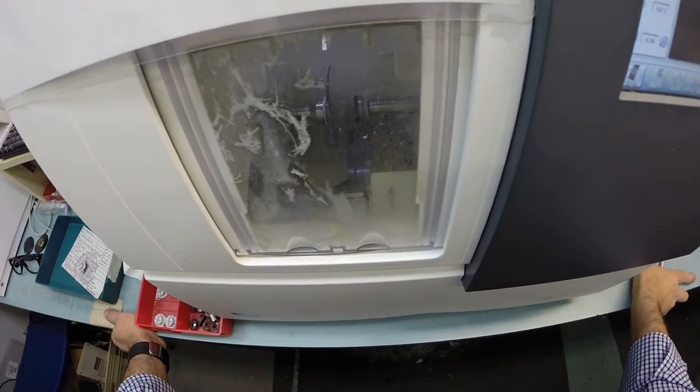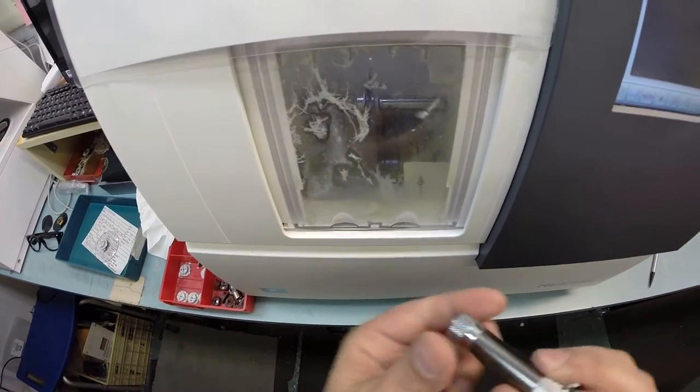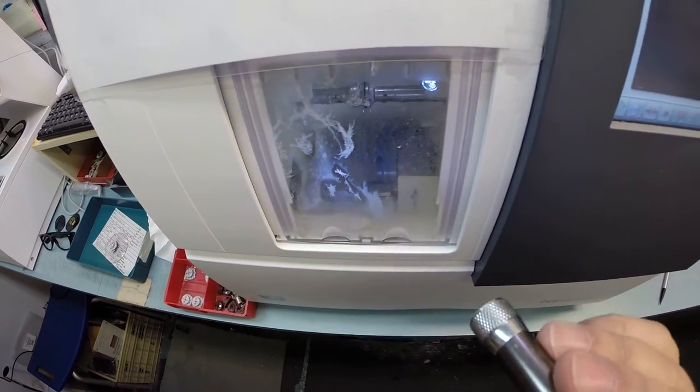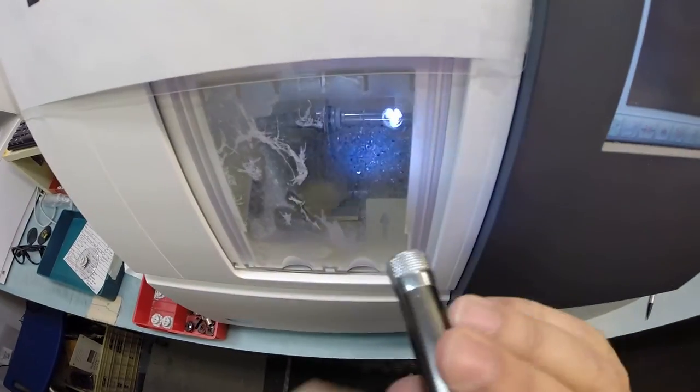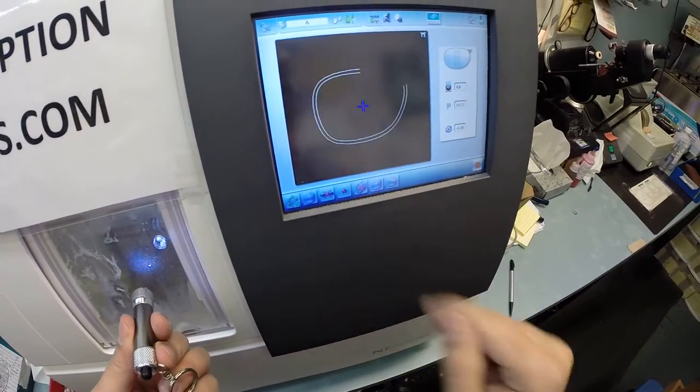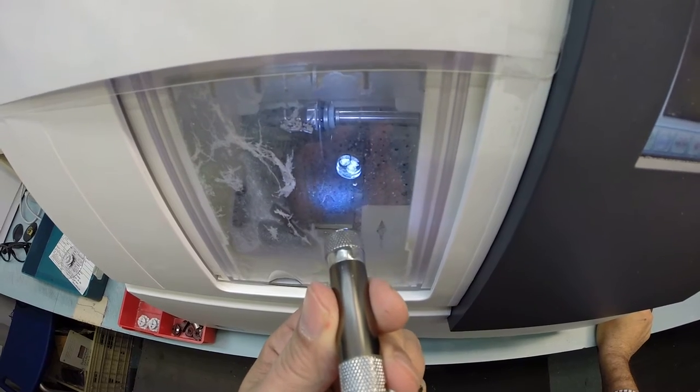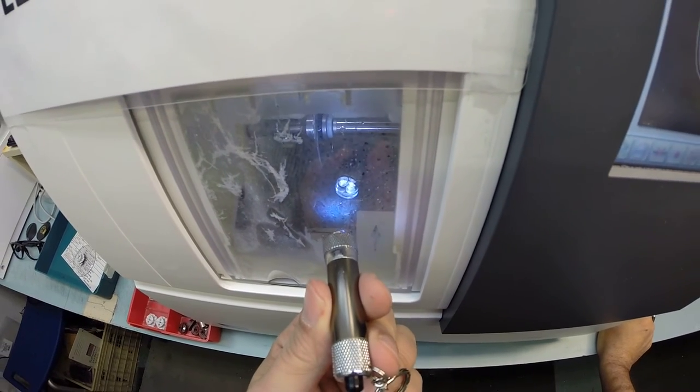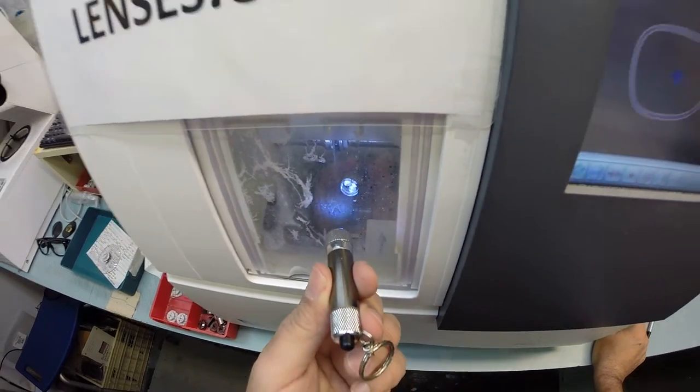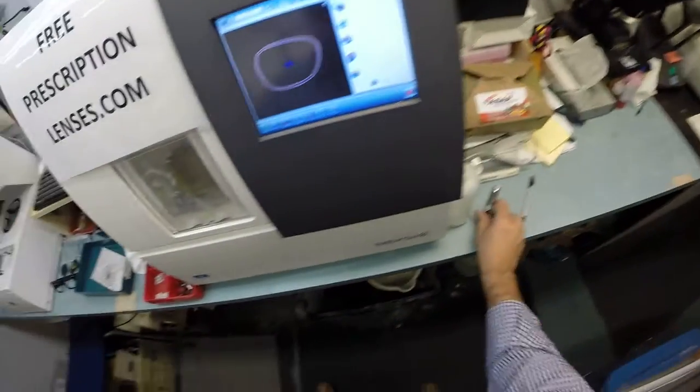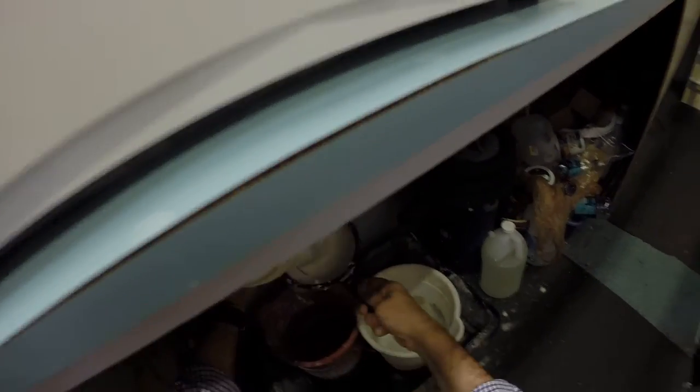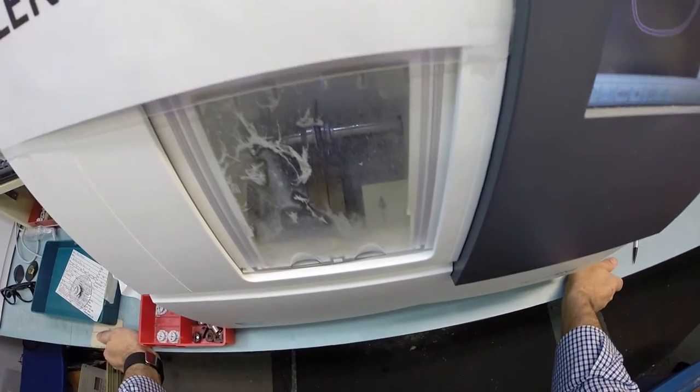Let's go ahead and hit start. The door closes. The clamp shuts. The very dirty door closes. But that caliper is going to go around. It's going to trace the shape of the right lens, measuring the thickness of the lens at every point to know exactly where to place the bevel so it fits best inside the frame. The other thing I need to do is empty the trap from the last one I cut. Now we can begin cutting.